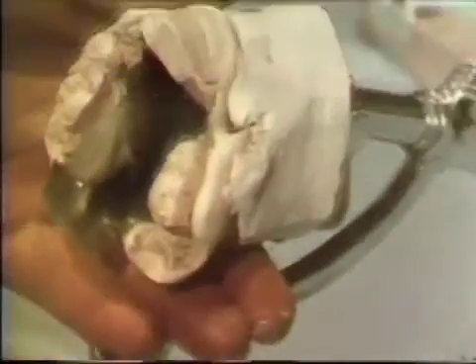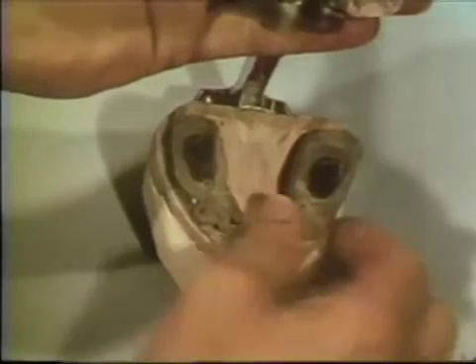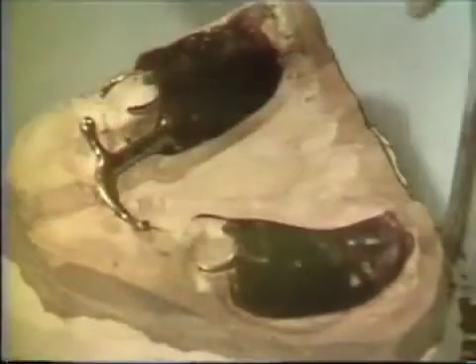When the mounting is secure and the plaster is set, the two halves of the articulation are separated and all boxing compound and wax are removed. With the wax and compound removed, the articulator is closed and the occlusal stops are inspected to be sure that the relationships have not changed during the mounting operation.